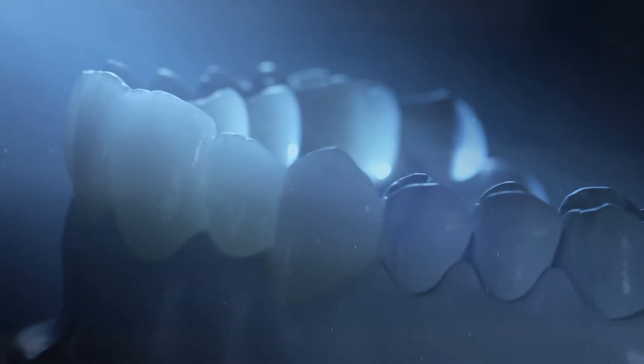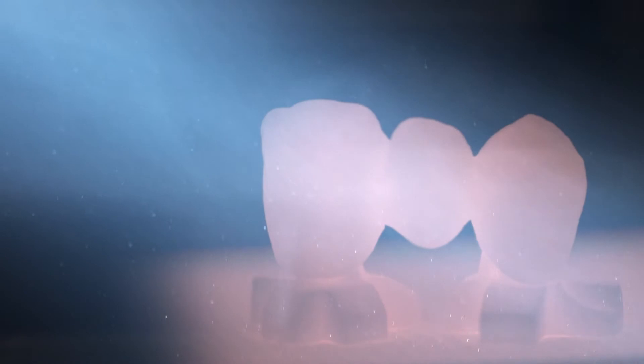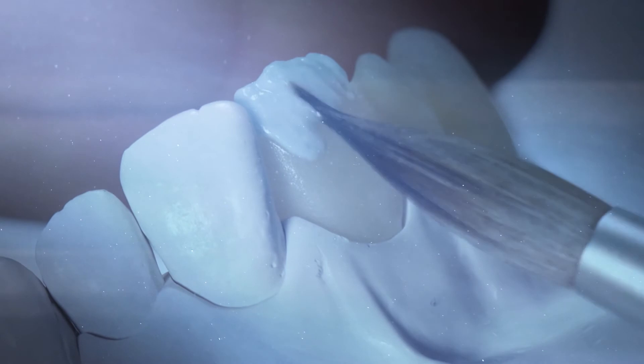A straightforward monolithic restoration, quick, safe and simple, already provides attractive basic aesthetics. The cutback technique makes further customization in the cutback area possible in just a few steps. And with the fully veneered variant, there will be no limits to the aesthetic possibilities provided.